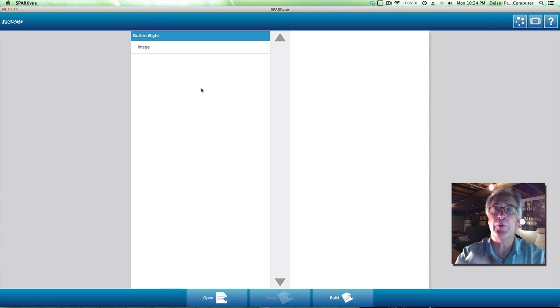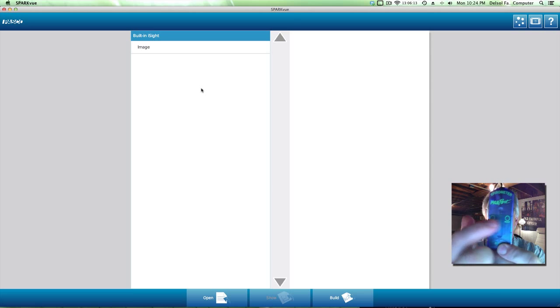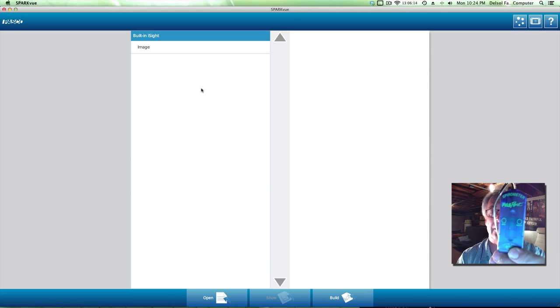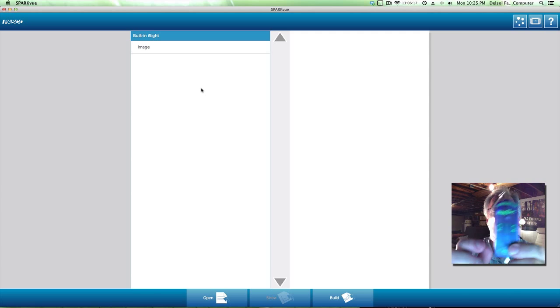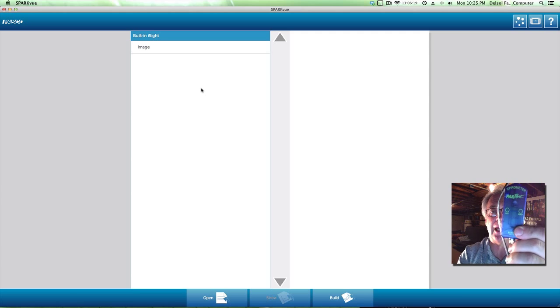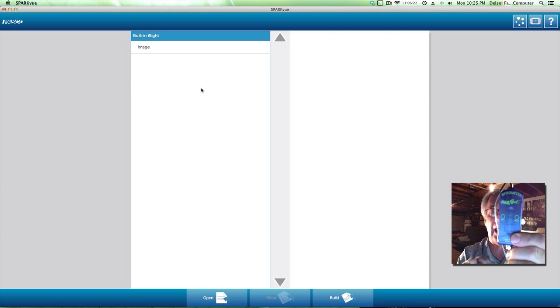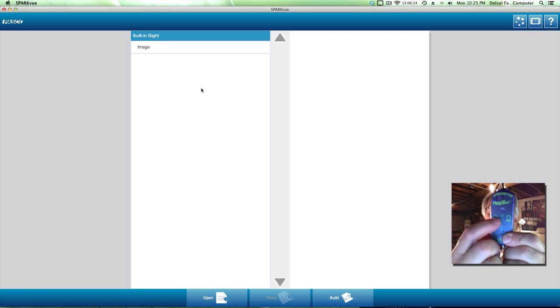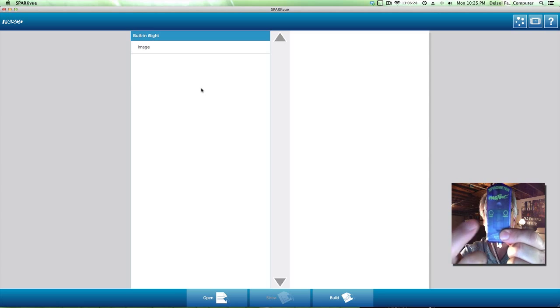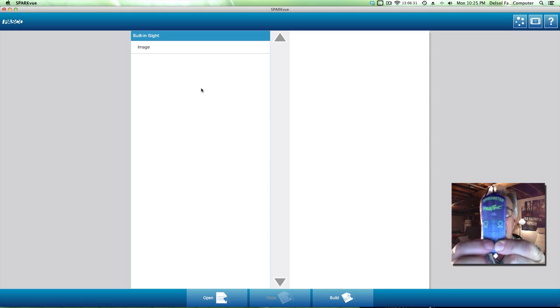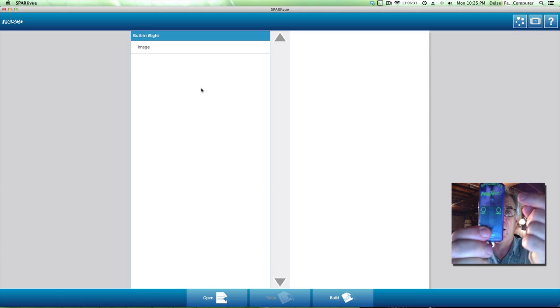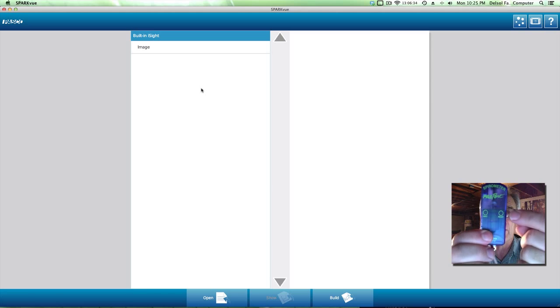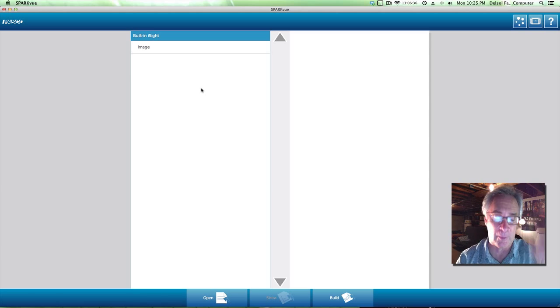Now, if we look at the amplifier box, it's a little bit more unique in the fact that it has two lights. It has a wait and it has a ready. When you first plug it into the data port and you press play, the wait light is going to be blinking. Do not pick up the mouthpiece until that light stops blinking. It's usually red. When the ready or the green light launches, that's when you pick up the mouthpiece and use it.